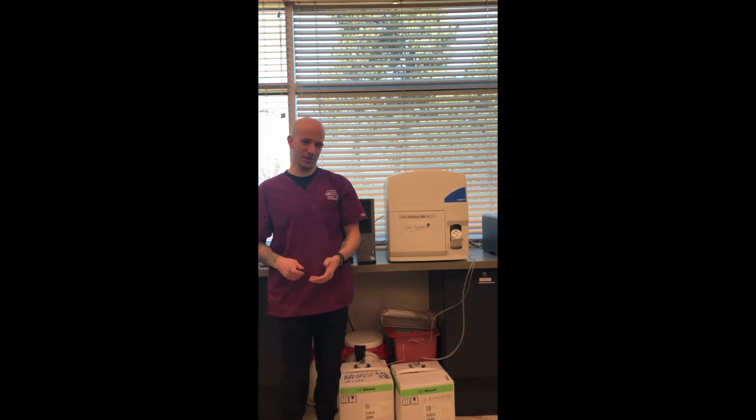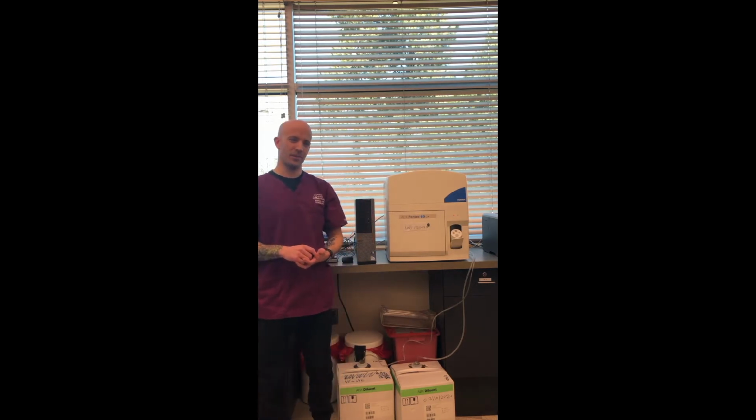Some things I want to go over today is our daily routine for how we start up our analyzer and some just general maintenance that we like to do to make sure it's passing startups consistently.